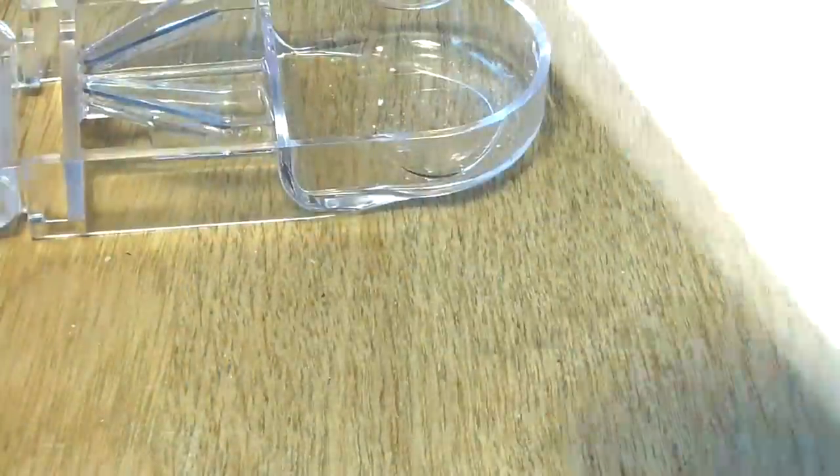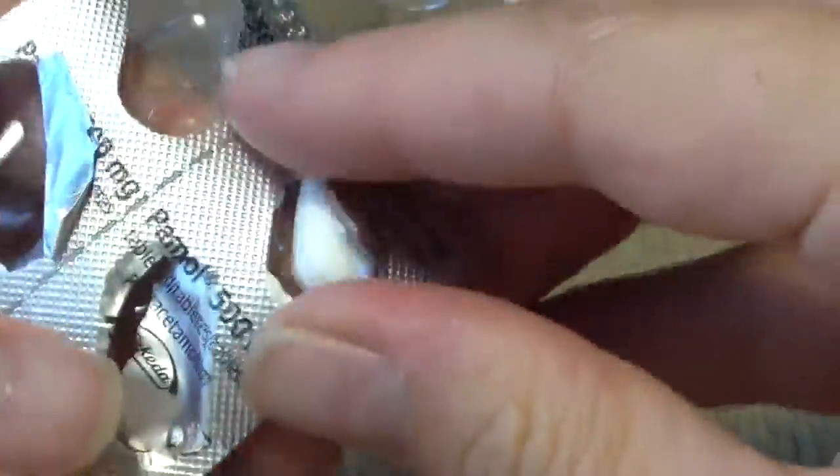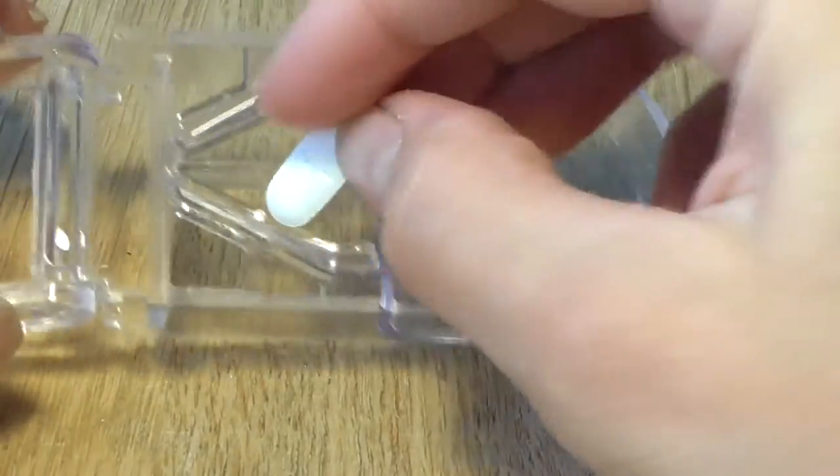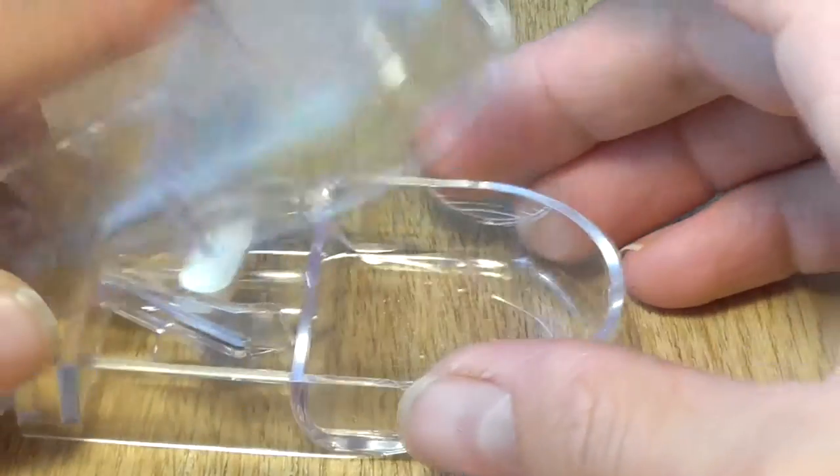I have here the biggest pill that I found. Sure, there are larger ones, but I have this size and we will use it. It fits in here with ease and let's press.